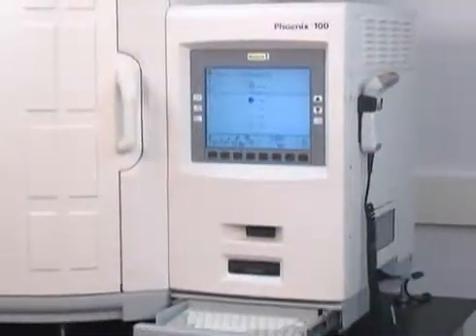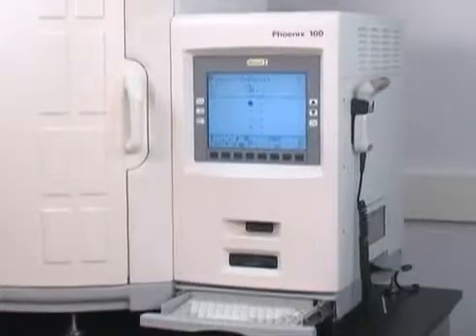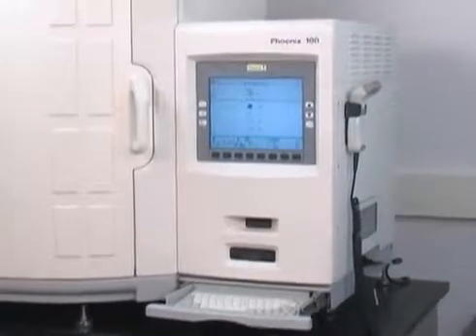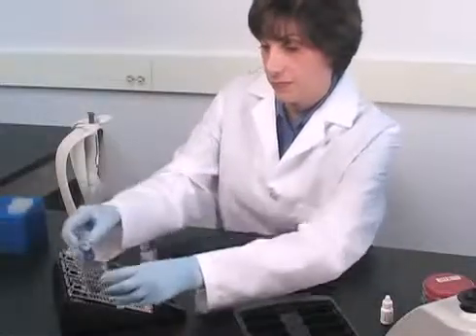The operating software uses an LCD screen, keyboard, and scanners for easy barcode readings.